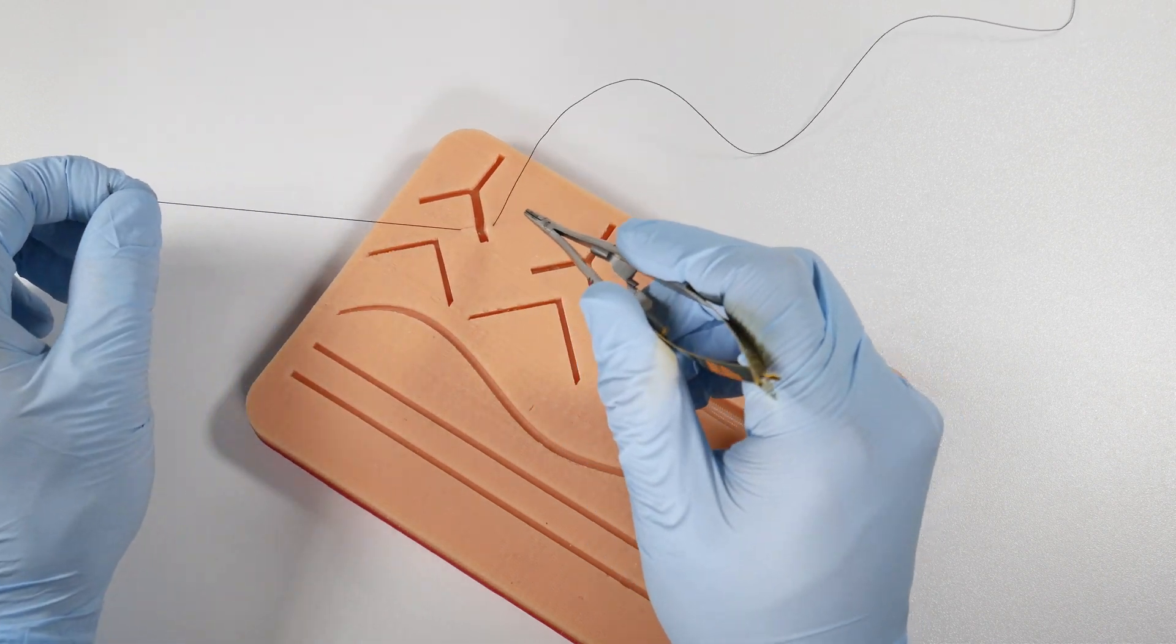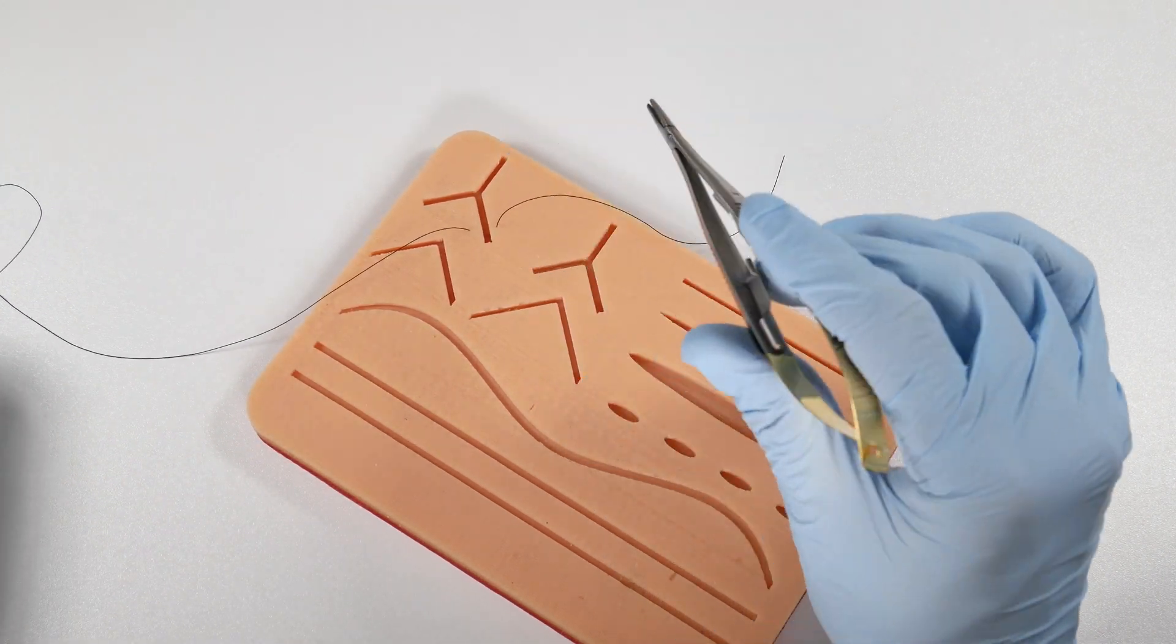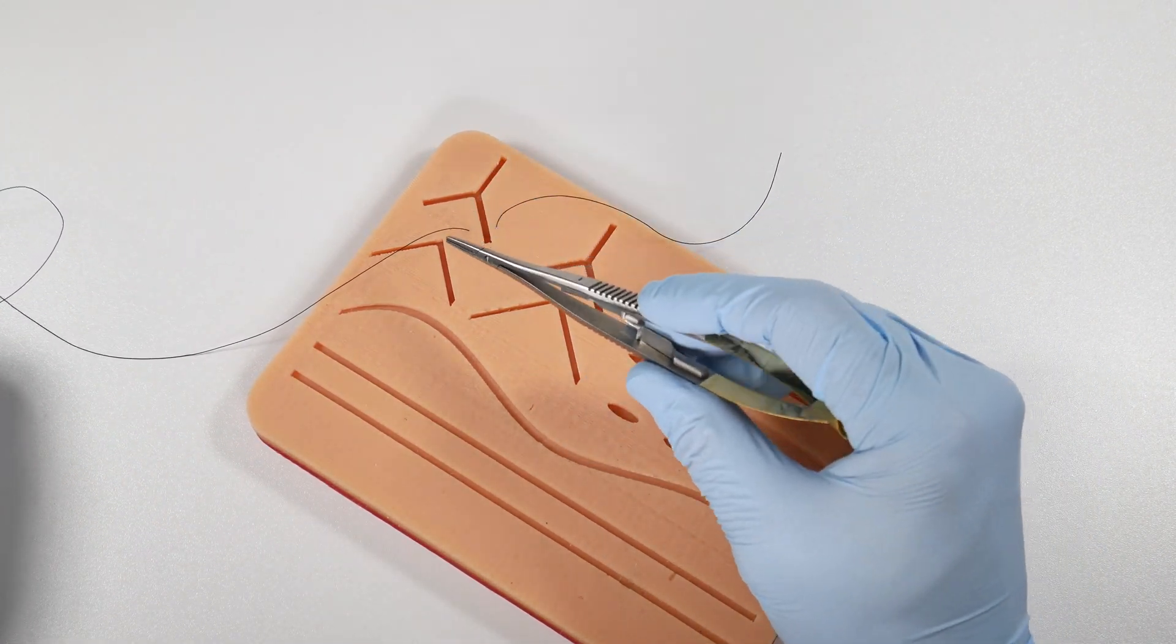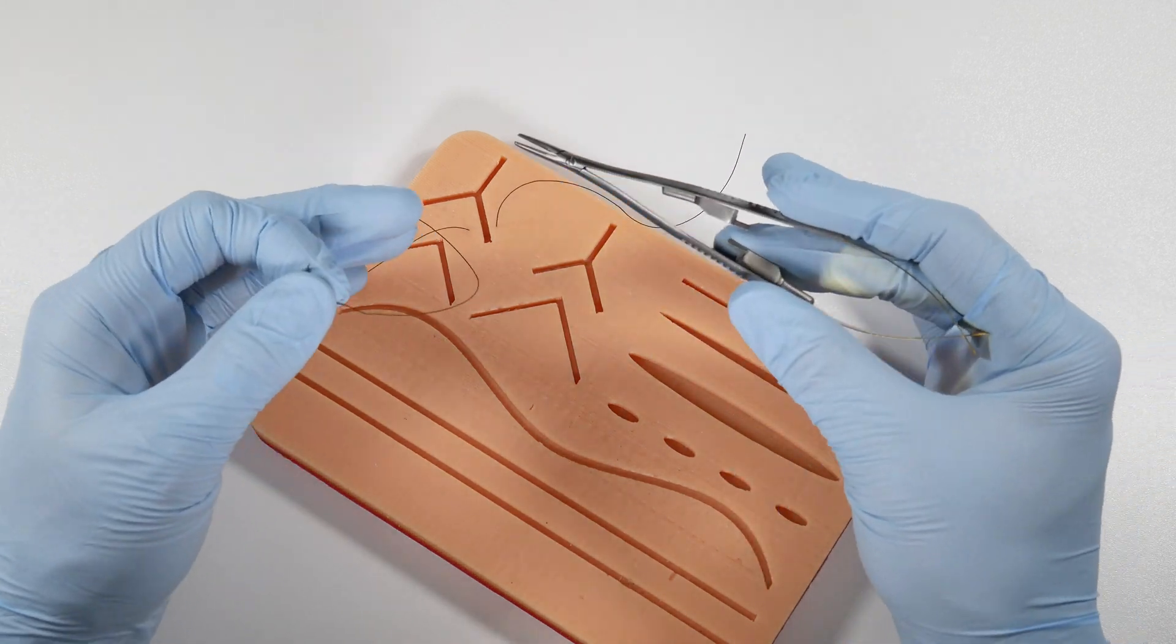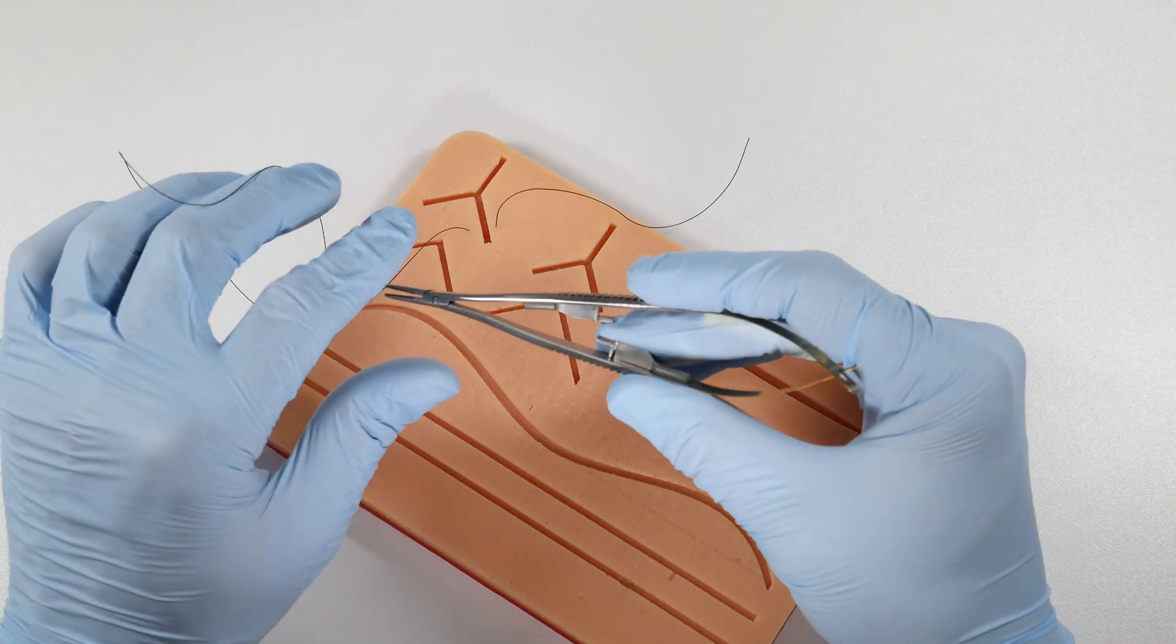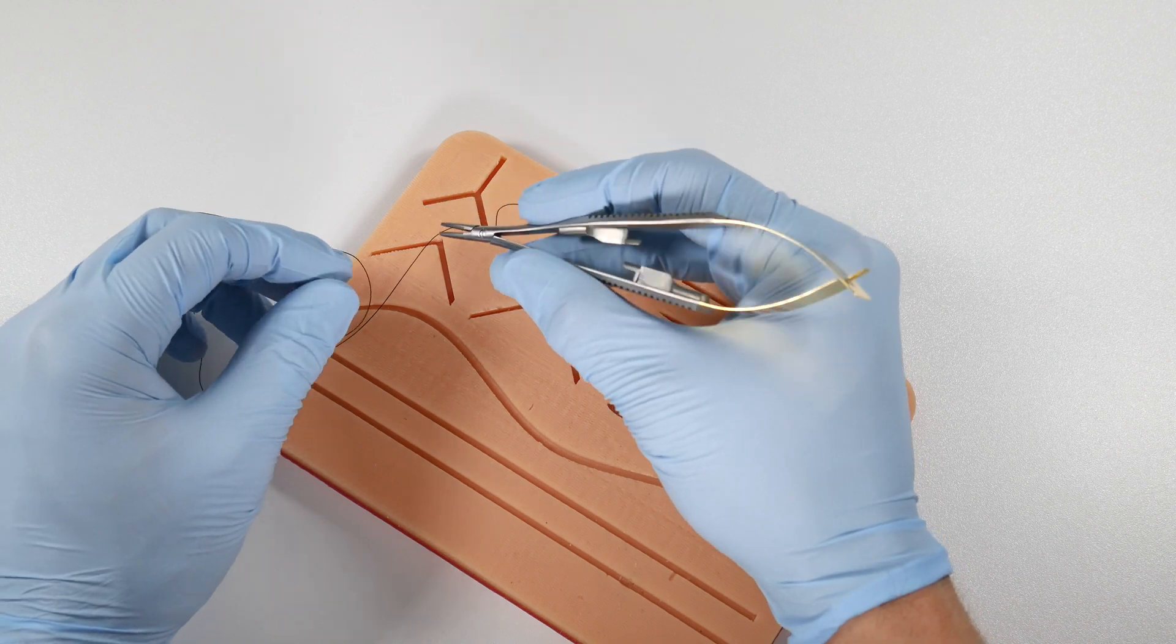I find sometimes that these might be a little bit better in areas other than perhaps the third molar region because, again, a little tougher to get back there with this grasp in the back of the mouth. But for most other situations, these are a great addition to your armamentarium.